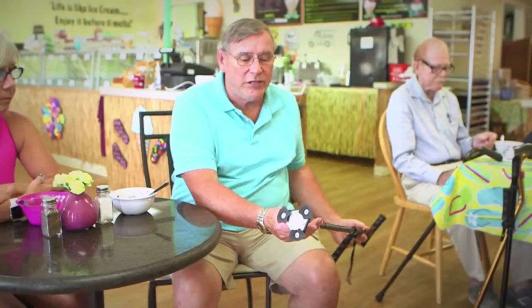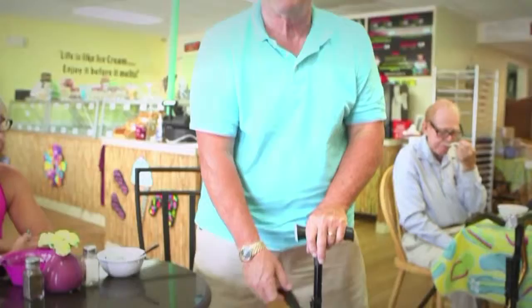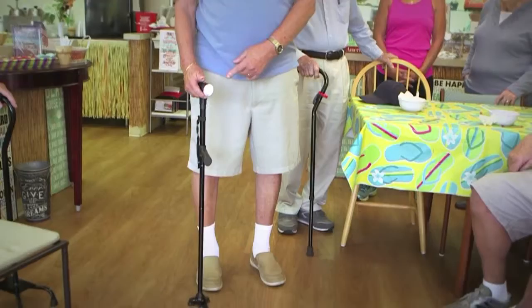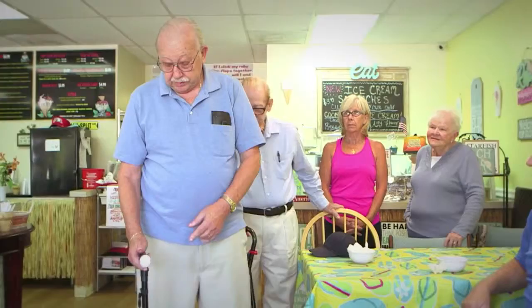This light is especially important to me. I get out of my car at home, go to the front door, and I'm always fumbling with the keys in the dark. The Clever Cane will stand by itself — it has stability, a three-prong base, and it's very lightweight and versatile. It has two handles, and as a fairly large guy, I would use the two handles to get up rather than just one. It's very compact so it's not going to be a trip hazard. When you get out of your car at night, push the button and it gives you a light — you can put it right to where your key goes to the door. It's a good safety feature.